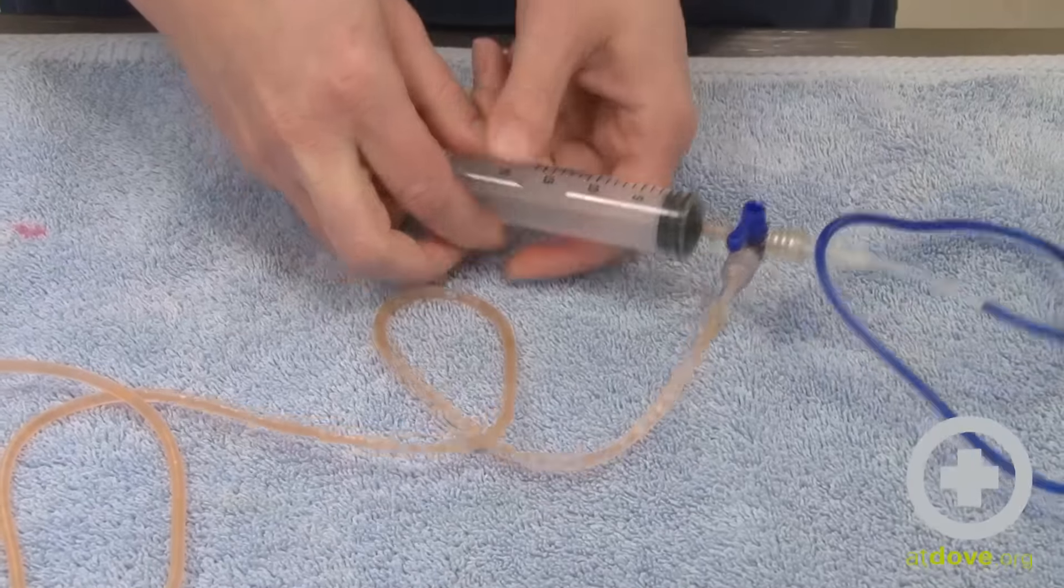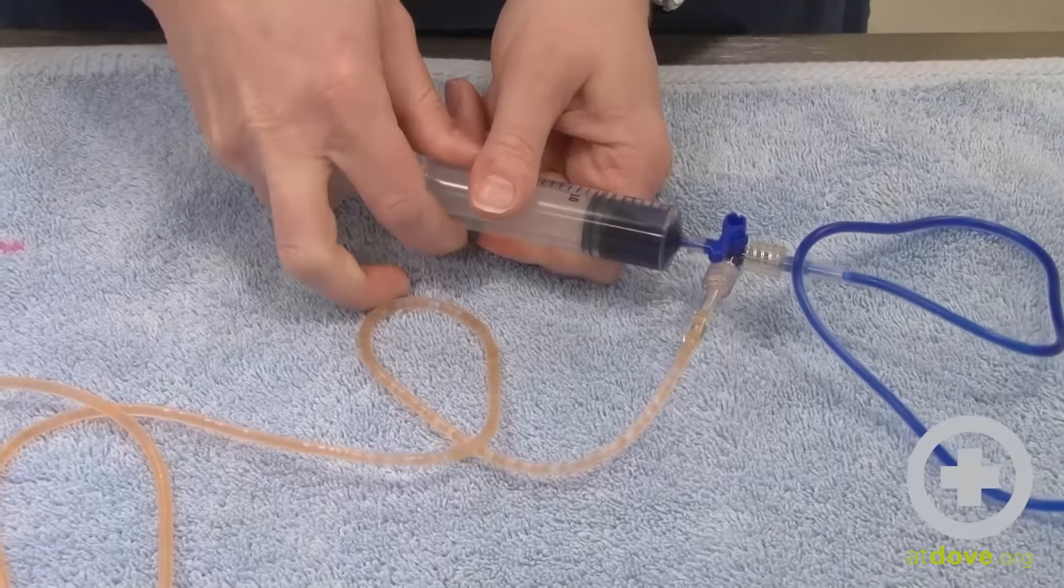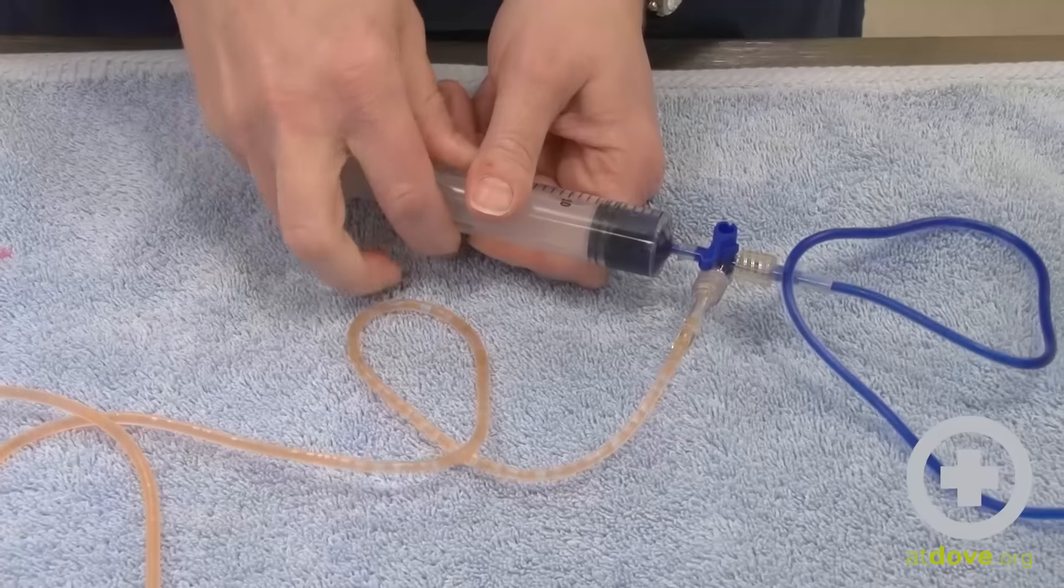If I close off to the red and I draw back I'm going to get the blue. So in both directions, pushing and pulling, I'm using the blue.